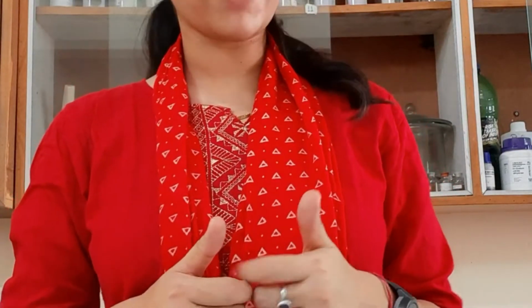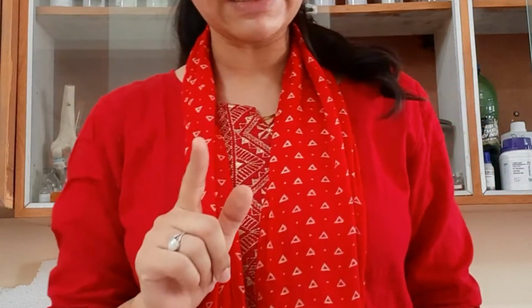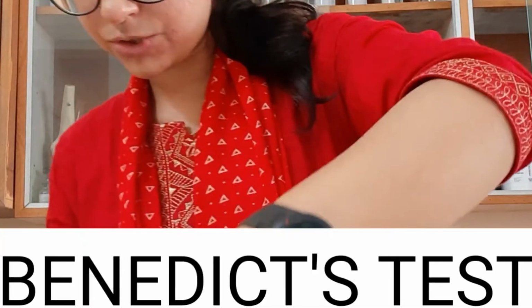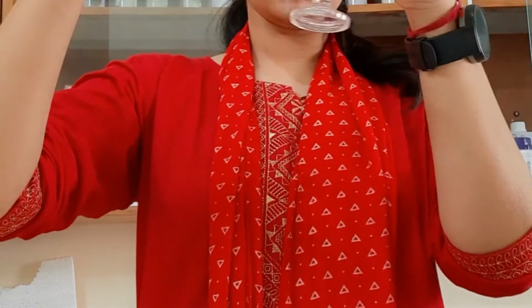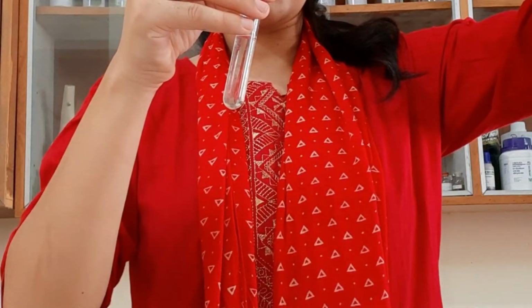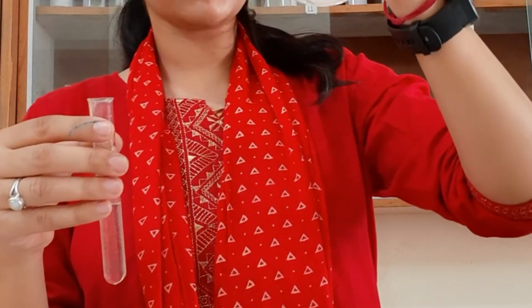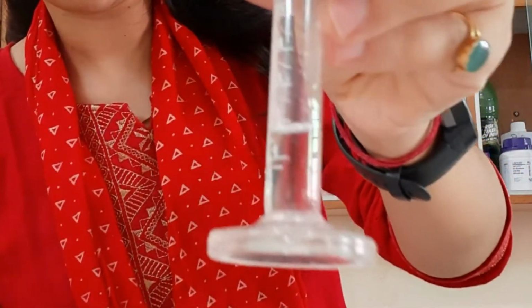So the first experiment we are going to perform is our Benedict's test. Clear? That is what I'm going to do. Now what will I do? I will take 2 ml. As you can see, this is the measuring cylinder. So I will measure 2 ml of urine. If it is a little bit more, then I will just add it back. Right. So here is the exact 2 ml. I will show you, as you can see, it is 2 ml of urine.